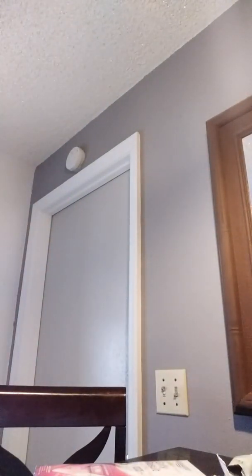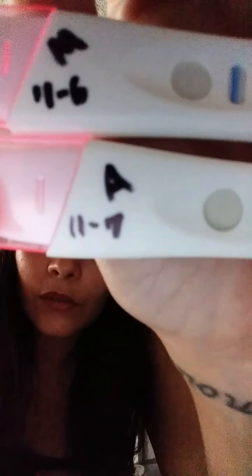I still have this one but I have to take it later — this is the one I took. Let me get it right here. Okay, so these are the ones that I took. Let me turn off the light so you can see better. You can see the lines are there — you can see them. So it's like I'm confused. I mean, I clearly see a line.